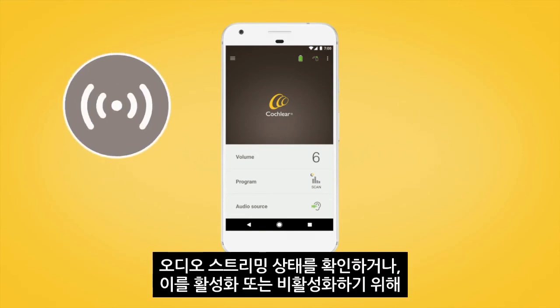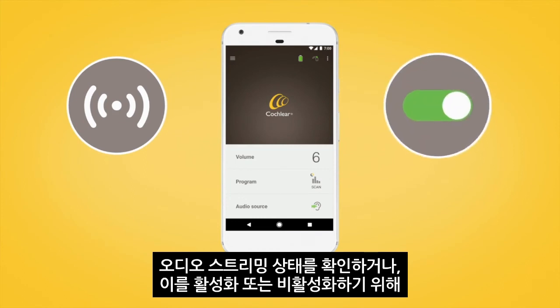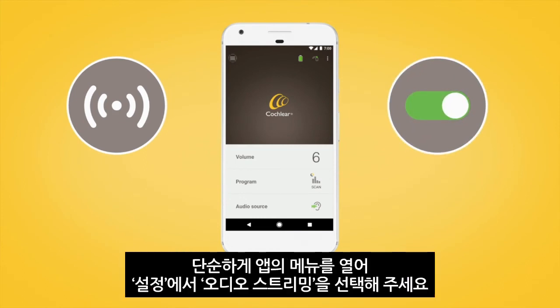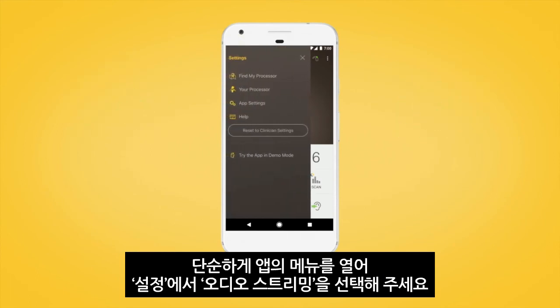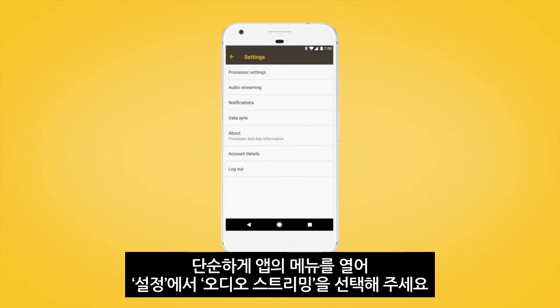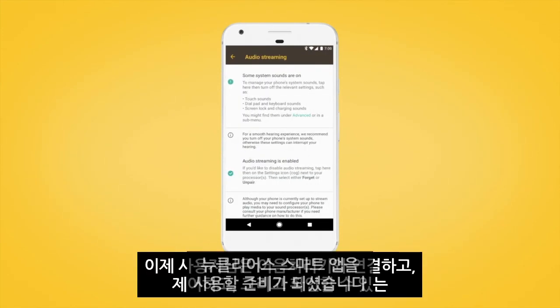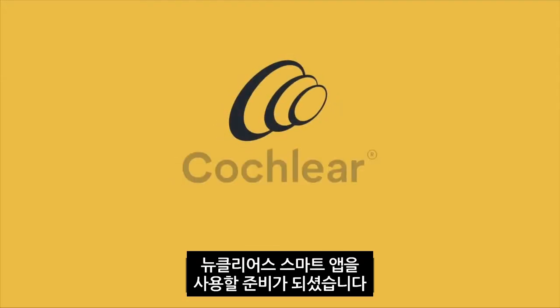To check your audio streaming status, or to disable or enable it, simply open the app's menu and tap Settings, then tap Audio Streaming. You're now ready to use the Nucleus Smart App to connect, control, and monitor your sound processors.